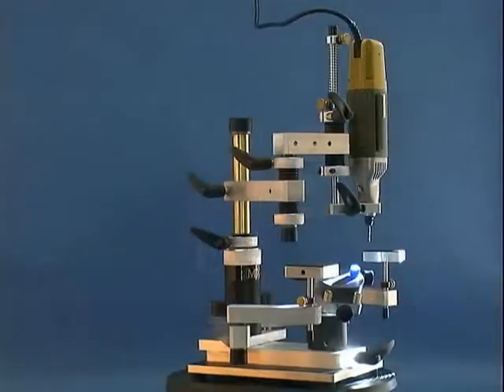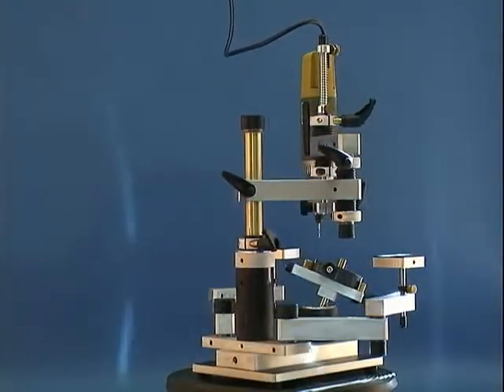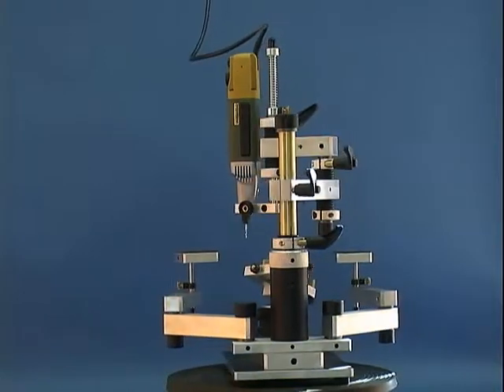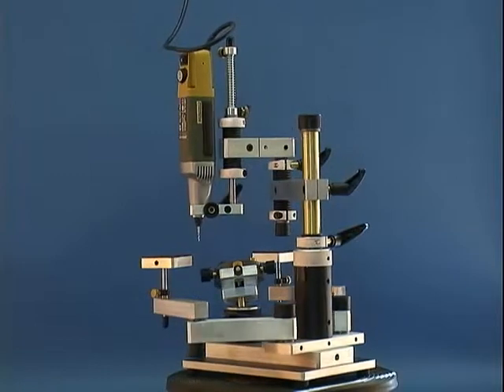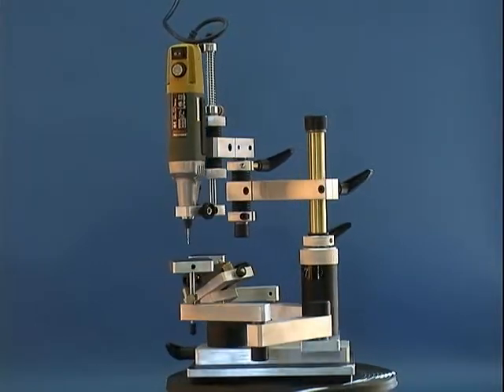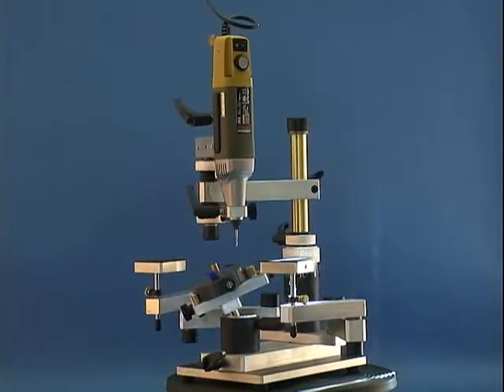What makes the Ferraro milling machine so unique is the ability to interchange components within the MX series. That means that an MX-5 purchased in 1994 can be upgraded to an MX-7, Omega or DaVinci.